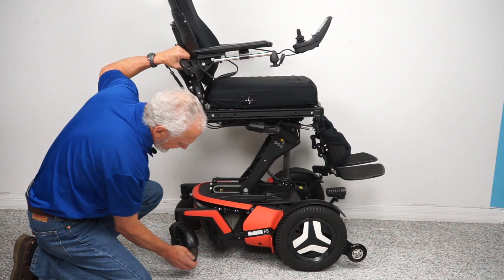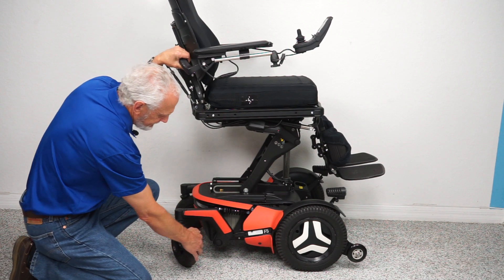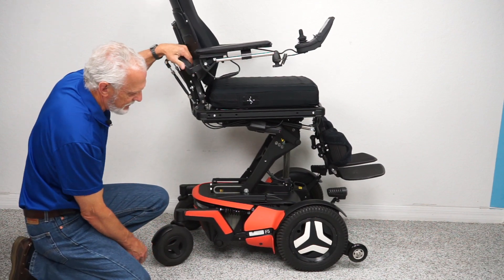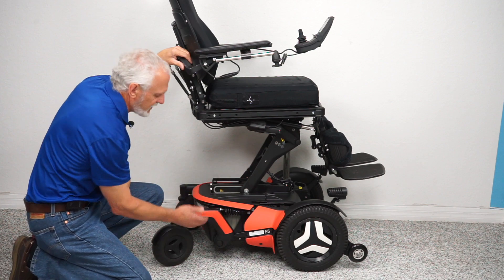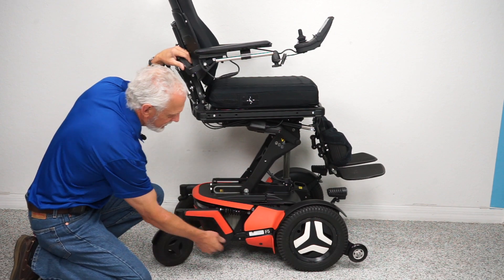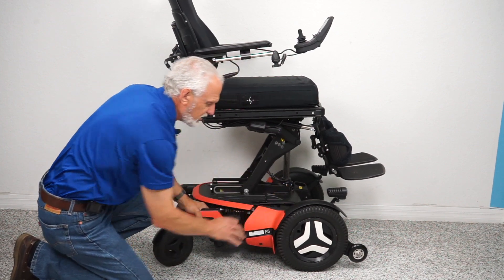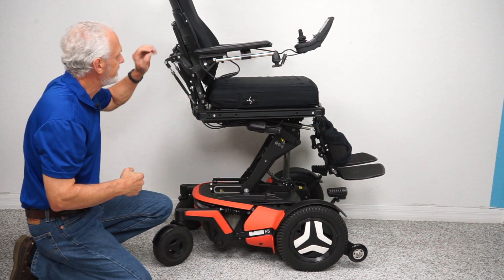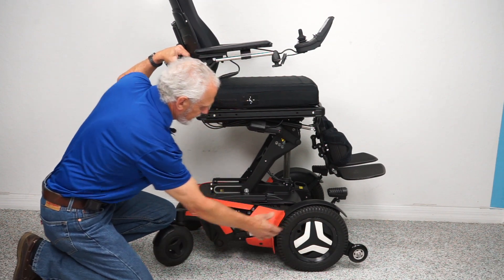This is a front-wheel drive chair. There's a little tip wheel but it's not on the ground. These are solid 14-inch wheels — they're not going to mark your floor. These are the original wheels on the chair. The rear wheels are caster wheels. You also have anchor points — one here and another by the fender — for when you want to secure and transport your chair.